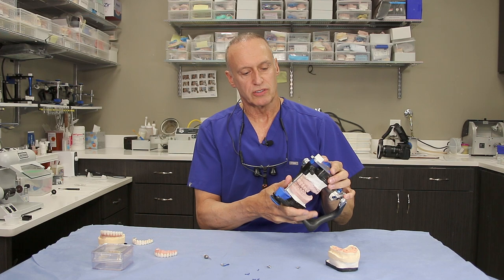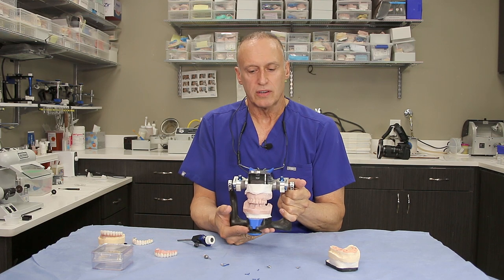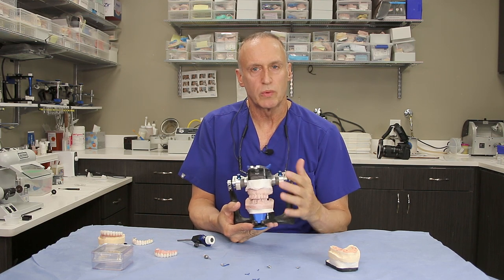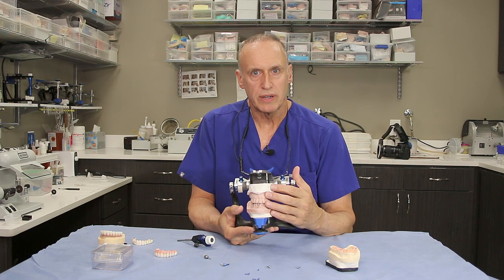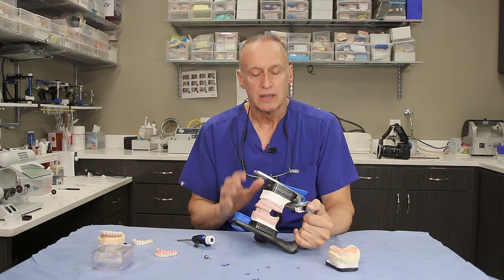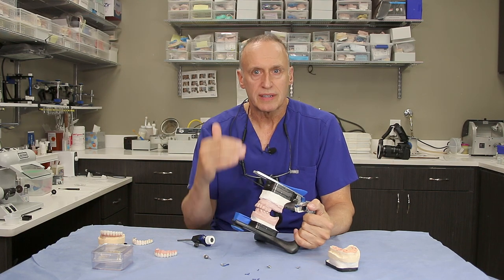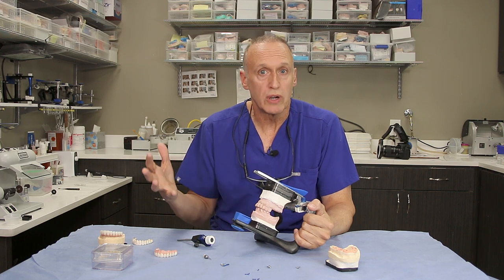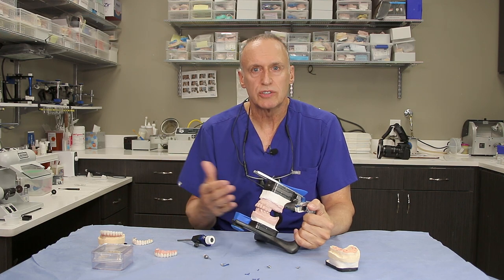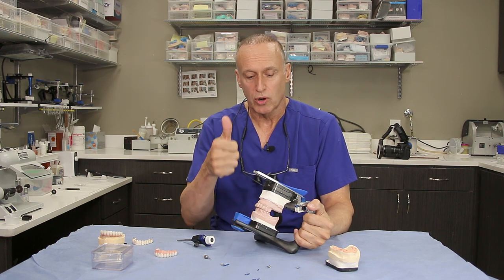This happens to be the patient that you're going to see in a little bit. If I take this off, you'll see that this is the way the patient was with their temporaries. The temporary bridge that we make for the patient — either at surgery if we have enough implant stability, or after two months if we don't — is our first prototype. It's the first prosthesis where we get to look at the patient and say, do we all like it? And if we don't love it, what changes are we going to make to make it perfect? So the implant temporary bridge — prototype number one.